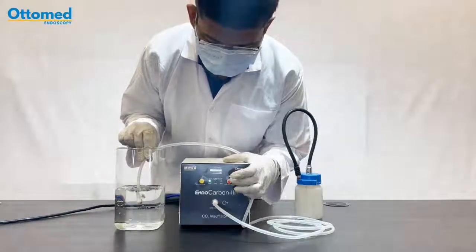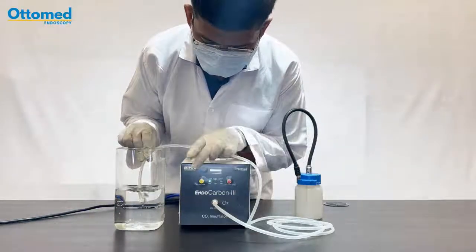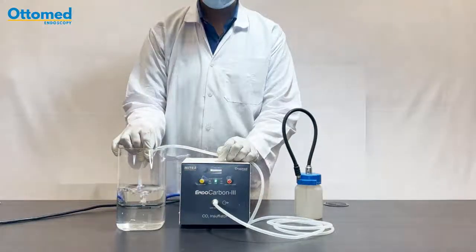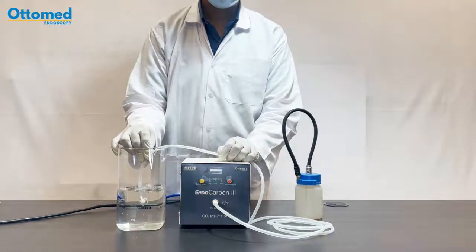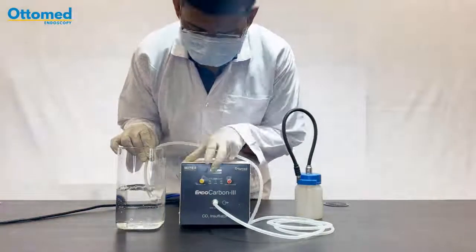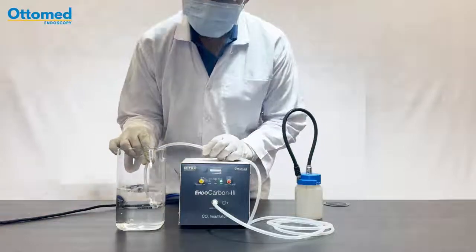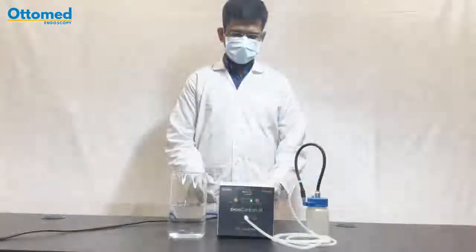Now I am changing the flow rate to low. This indicates a low flow. Now I am changing the flow to high. So this is high CO2 flow.